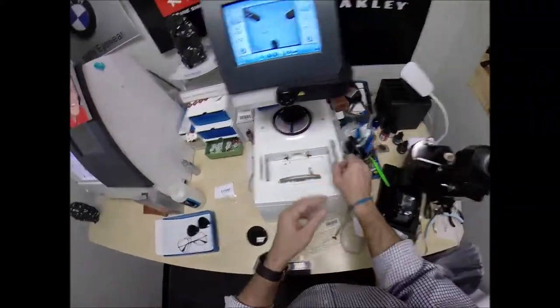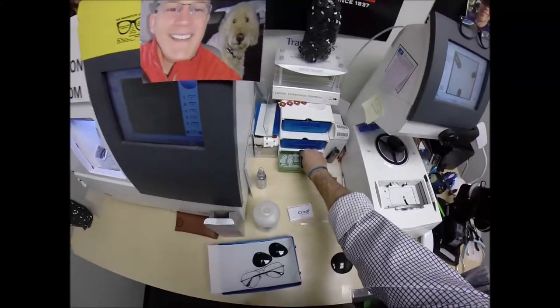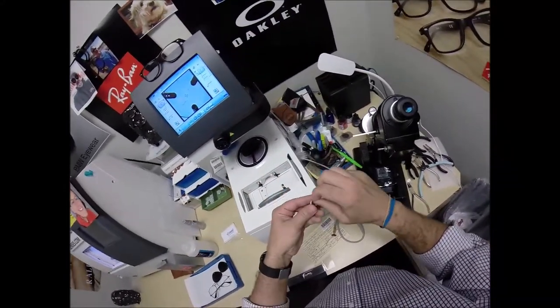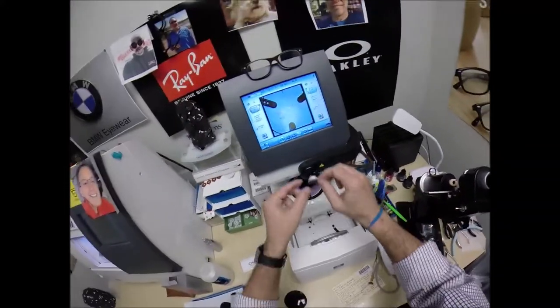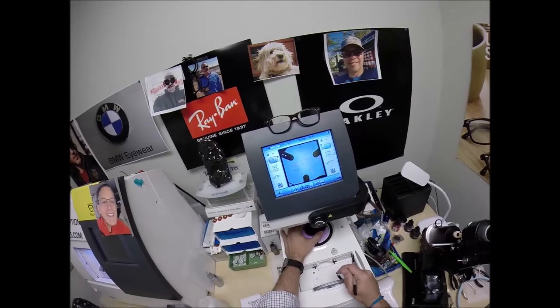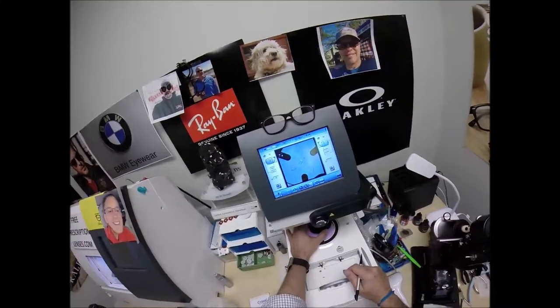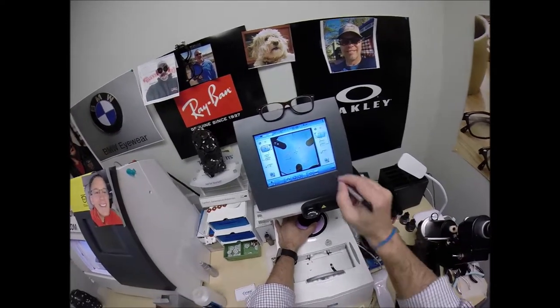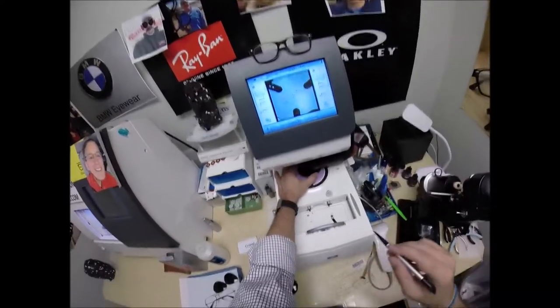Hello. Is this on? Okay. But I need a block to attach to your lens. You've seen me put the sticker before, so I'm just going to pull the paper off and make sure everything is laid out perfectly. Be thinking about who looks better. I'm coming back to that test in just a moment. Place that onto the right lens.